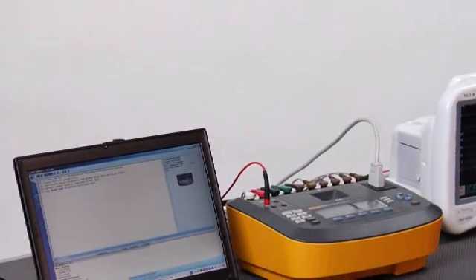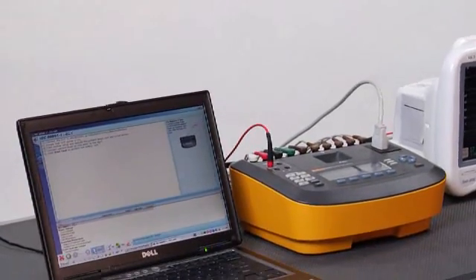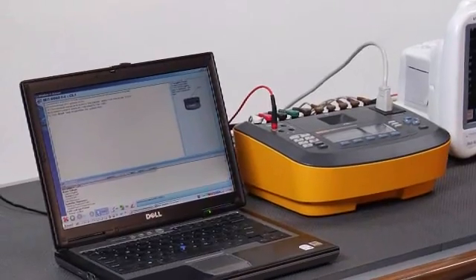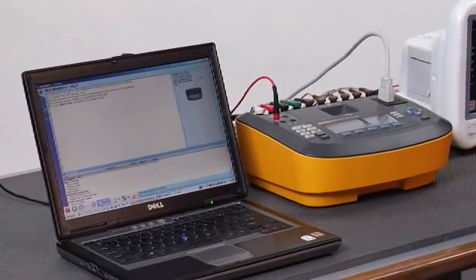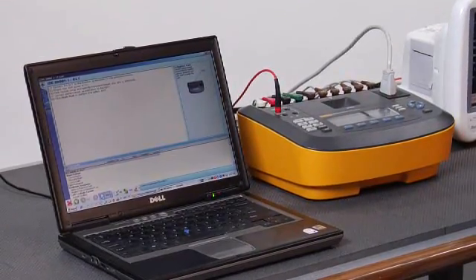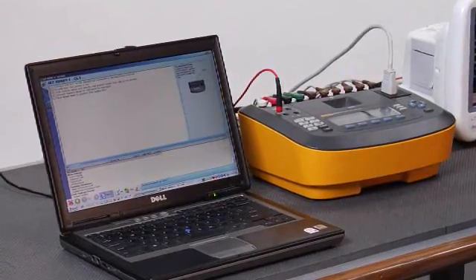Performing electrical safety on medical devices is easy using the ESA620 Electrical Safety Analyzer from Fluke Biomedical and Fluke Biomedical's test automation software.